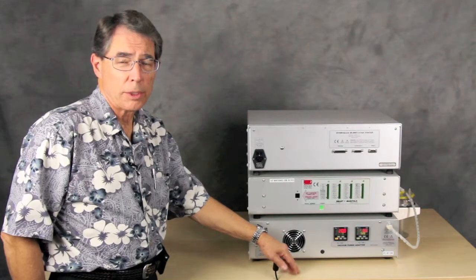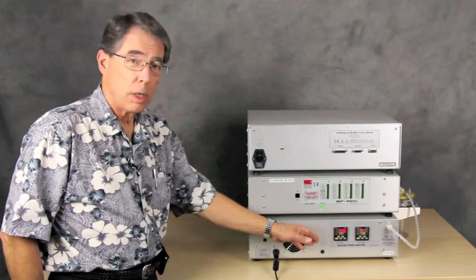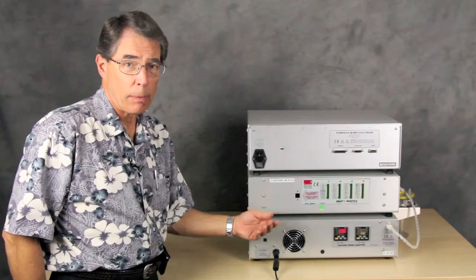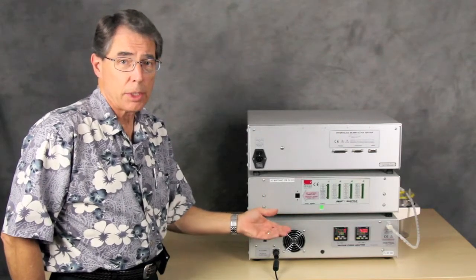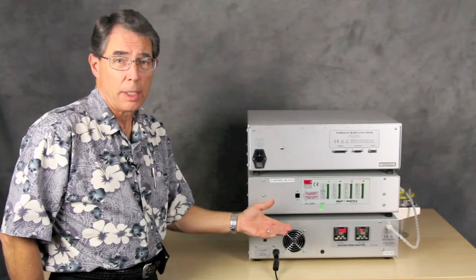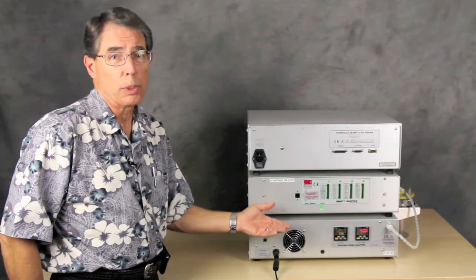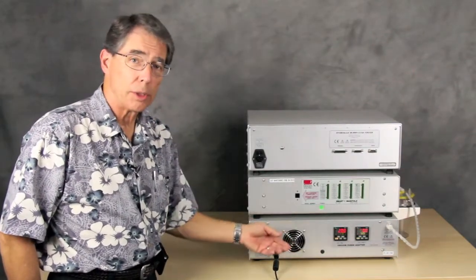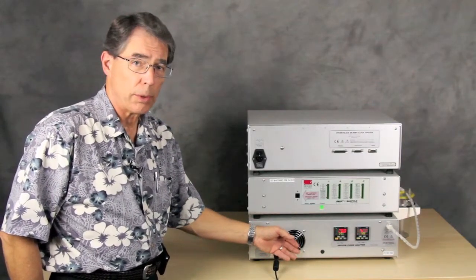With two timers, it allows you to select a shorter time when you're initially evacuating the catheter when there's only air. Some customers want to evacuate it after the catheter is done being tested, and they want to remove the water, which will take longer than the air. And the second timer allows you to set that to a longer period of time.